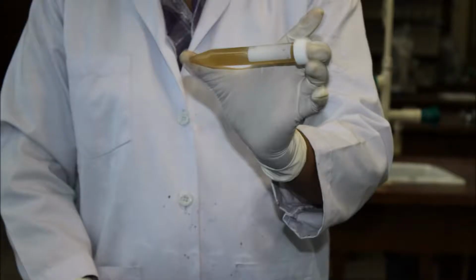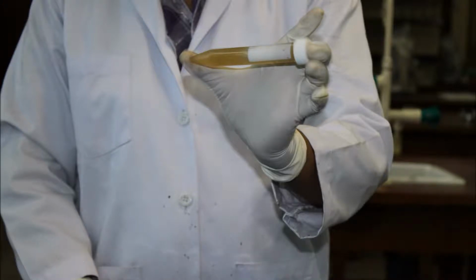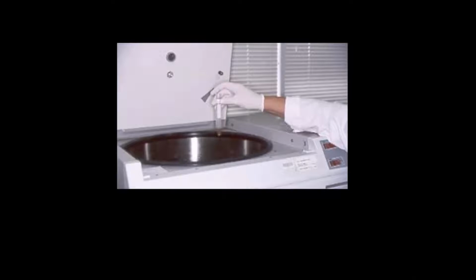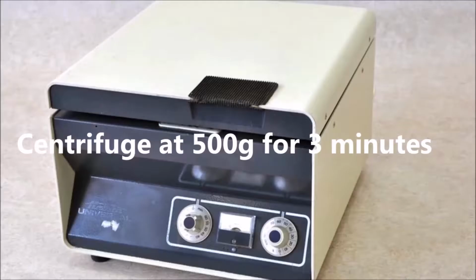Now you must mix the suspension well, so shake it vigorously for about 10 seconds. Let it stand for 30 seconds. Hold the tube directed away from your face and carefully remove the cap. Now your preparation is ready for centrifugation, so place the tubes in the centrifuge. Remember to balance the tubes in the centrifuge. Set the centrifuge at 500 G for 3 minutes.